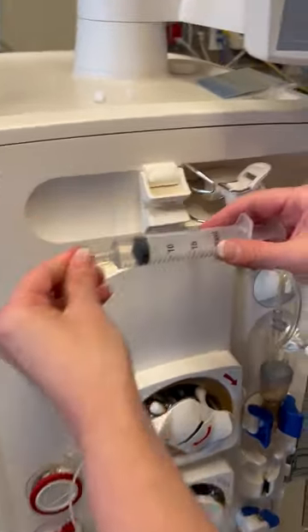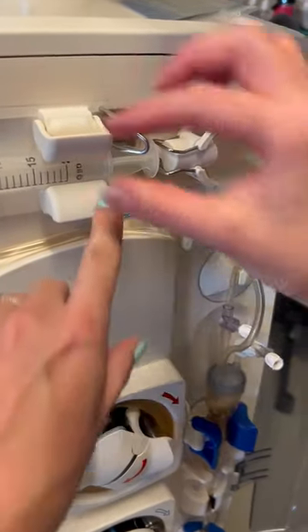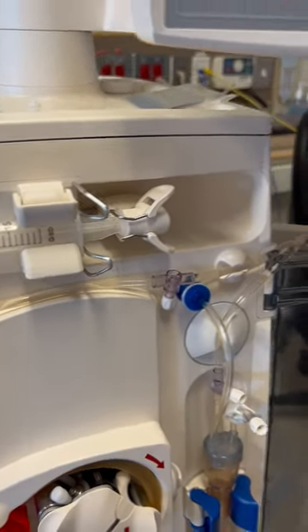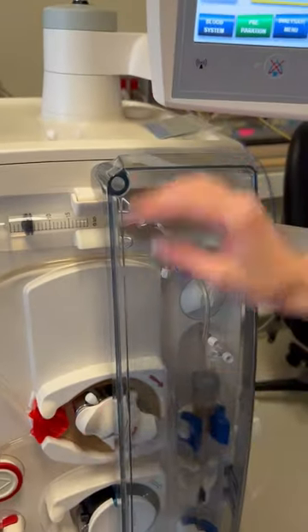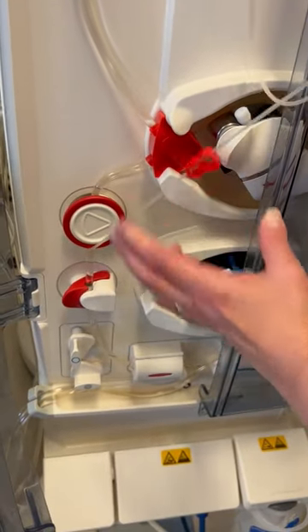Put the syringe up and put it into the heparin pump. When you insert it, you want to make sure those wings are between the plastic and the metal holder. Once the end is on, you're just going to unclamp the heparin line.